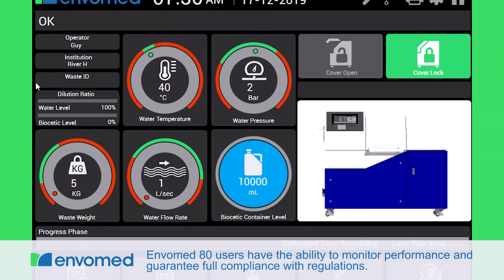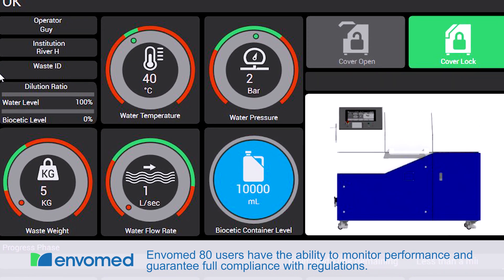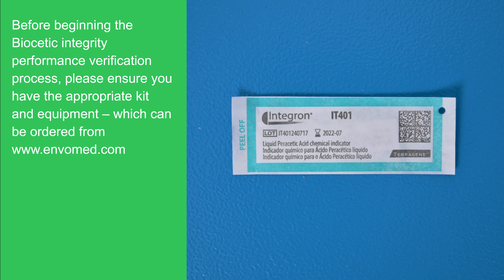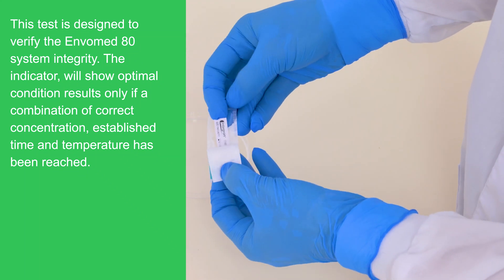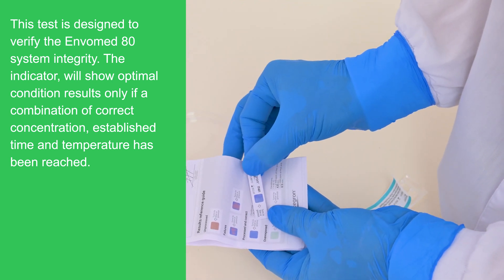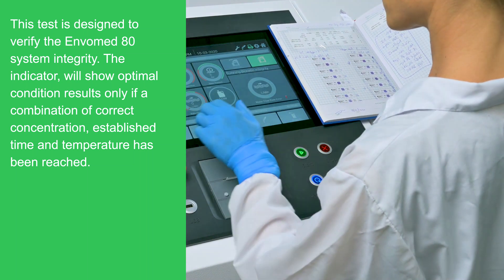Envomed 80 users have the ability to monitor performance and guarantee full compliance with regulations. Before beginning the Biocetic Integrity Performance Verification process, please ensure you have the appropriate kit and equipment, which can be ordered from Envomed.com. This test is designed to verify the Envomed 80 system integrity. The indicator will show optimal condition results only if a combination of correct concentration, established time and temperature has been reached.